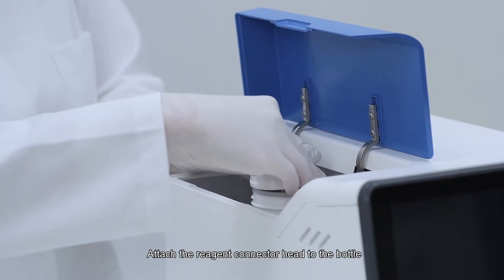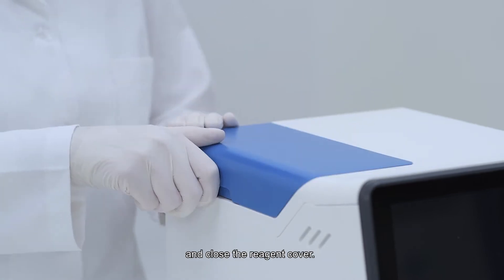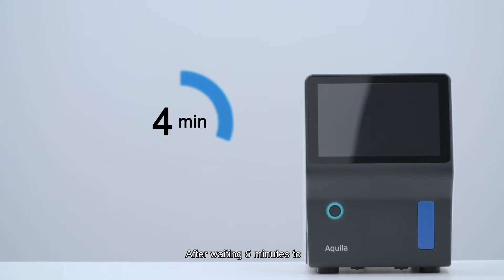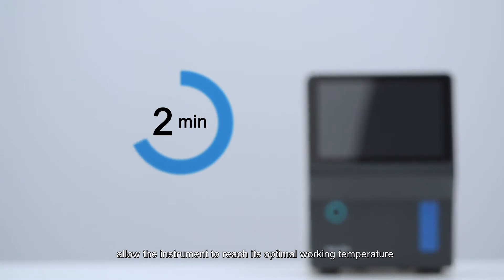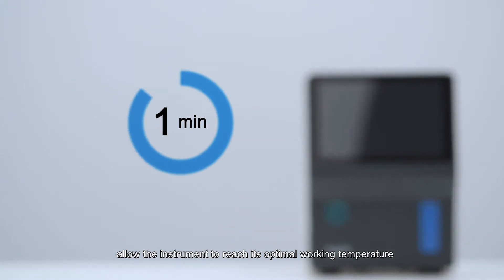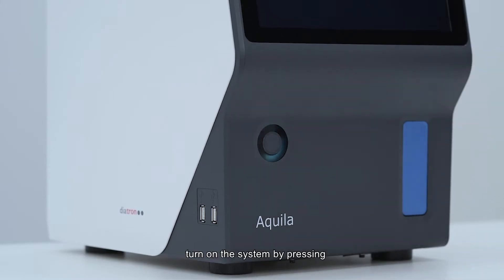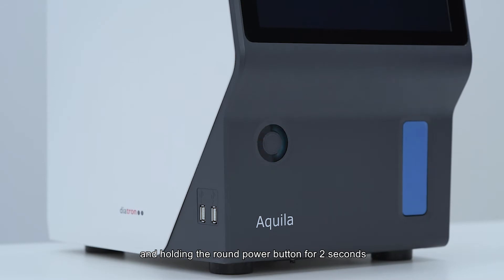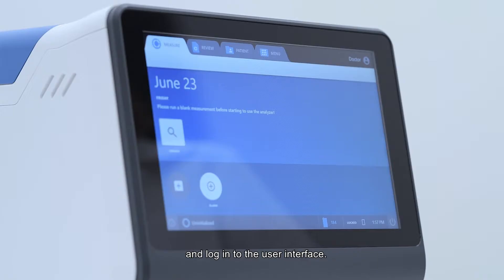Attach the reagent connector head to the bottle and close the reagent cover. After waiting 5 minutes to allow the instrument to reach its optimal working temperature, turn on the system by pressing and holding the round power button for 2 seconds, and log in to the user interface.